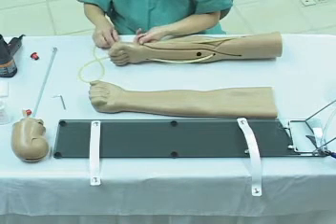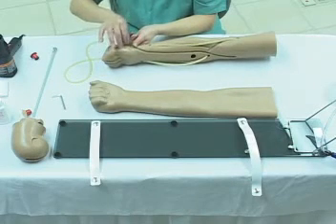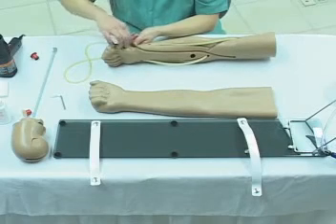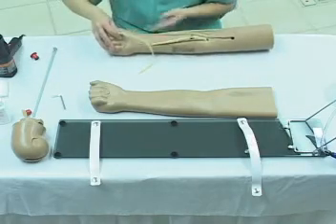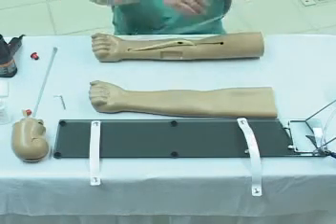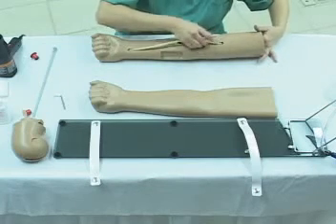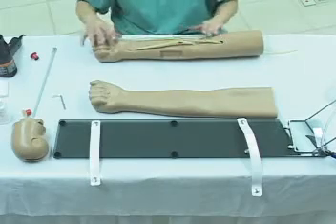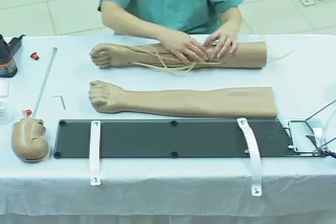Now we're going to come up the long vein, back inside the arm. Just feed it in slowly. Now we're going to let gravity work for us — put a little bit more vein in, and watch the vein appear in the access hole again. Now we're going to pull the vein through the access hole. The vein is reinserted into the access hole, pulled out through the hand. The tip of the latex is again inserted, push through. Pick it up again from the access hole. Now we're going to pull the vein through, coming out near the thumb, pulling it through. Laying the vein down the long of the arm, putting the vein through and out the top.